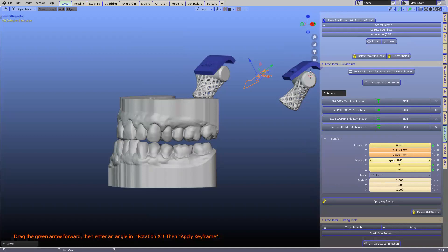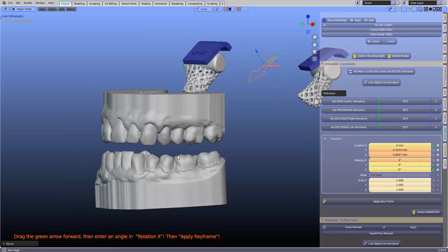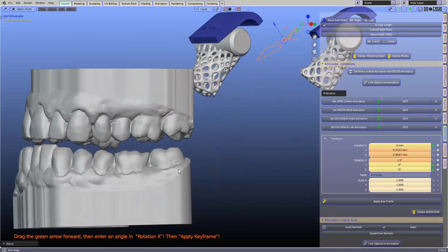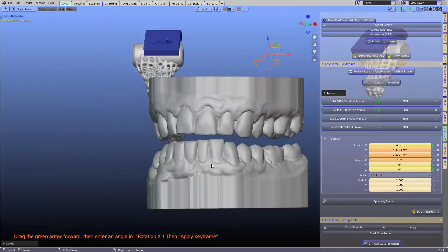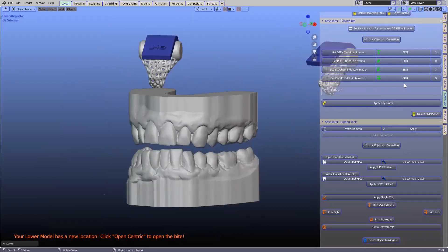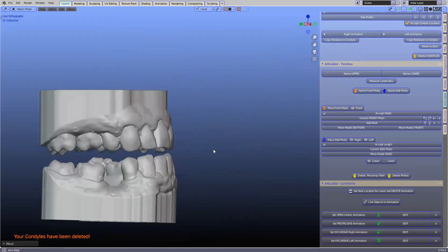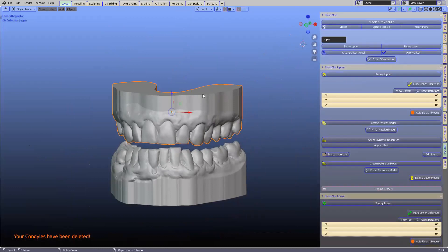In the forward movement position, I'm going to open it — three degrees is too much. We have to think about patient comfort. At 1.5 degrees that's about three millimeters open on the articulator. I'm looking at the posterior teeth because it's a double splint which is cut in half. I'll set the new location — click 'update module' since there have been recent changes. Now we don't need the articulator anymore, so we delete the condyles. We've got a new bite in protrusive and can continue.